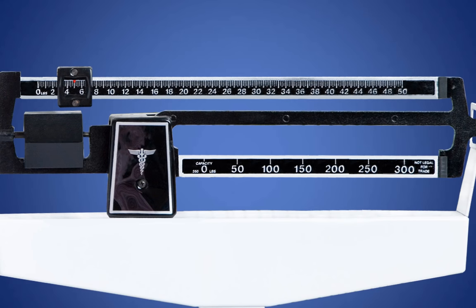So what does this line indicate? If you stated 5 pounds, you are correct. Now find and point to the 23 pounds marking. If you pointed here, you are correct.